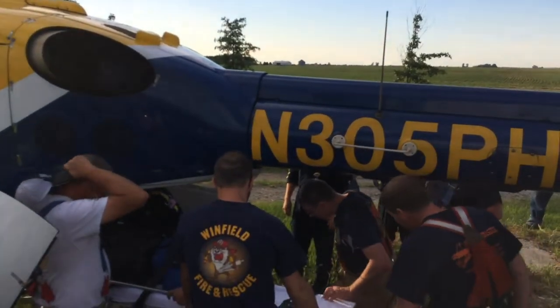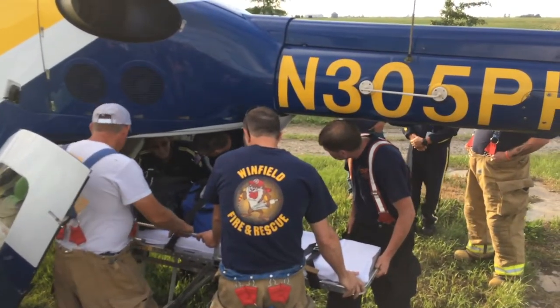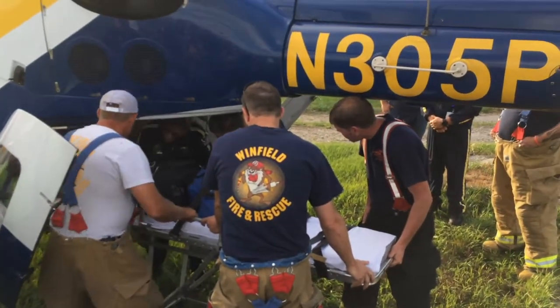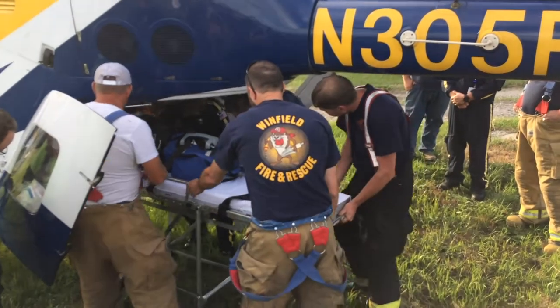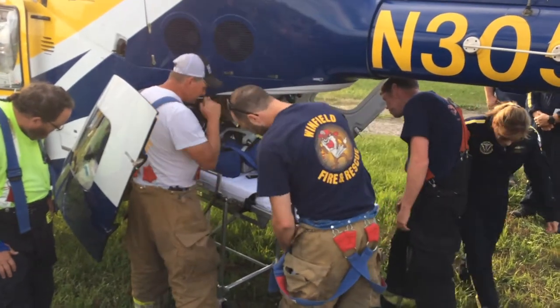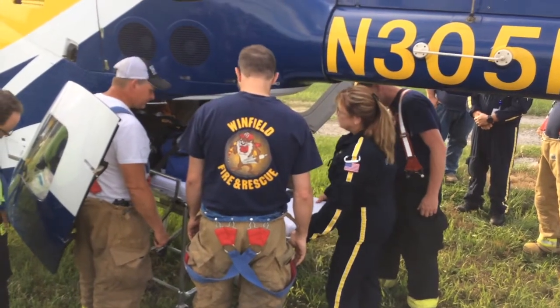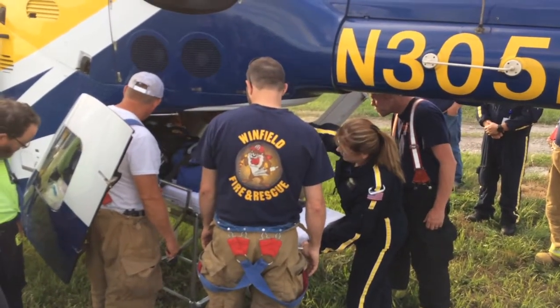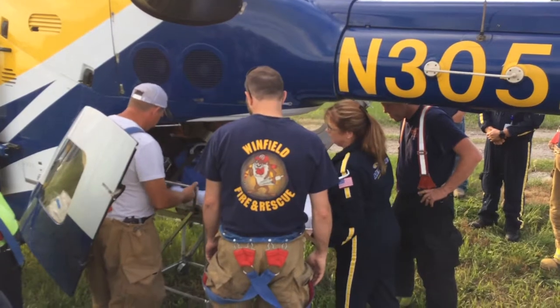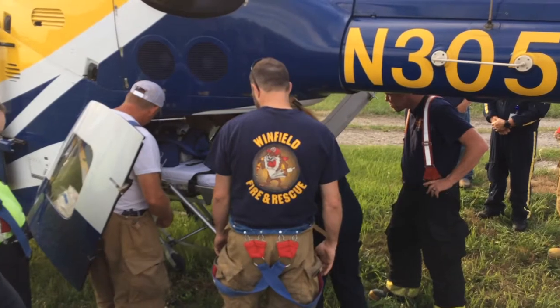Come over here. The medic — and I'm pretty sure this is true of every crew member — likes to be at the foot end. We start up here just because we're going to lift the front wheels in. You see how the wheels up in the air kind of roll. As long as this end is stabilized and won't roll out, this is where we're going to collapse it. The nurse will often get in to help guide it and any equipment. All it requires is for it to be even and level, and then it pushes in and the wheels collapse as they go.